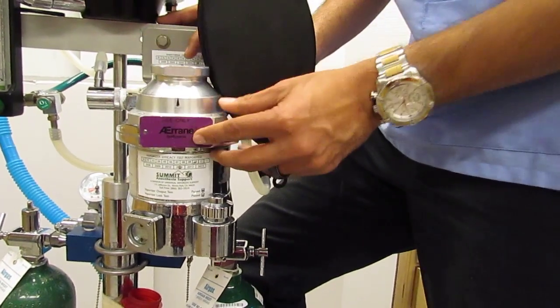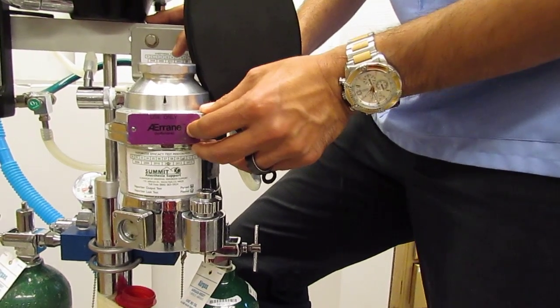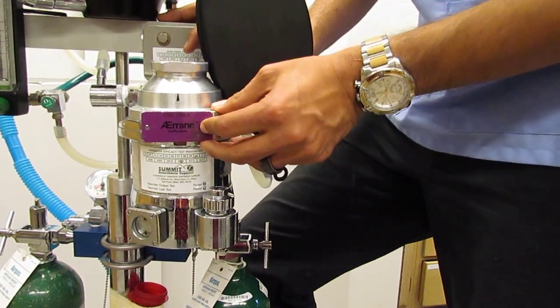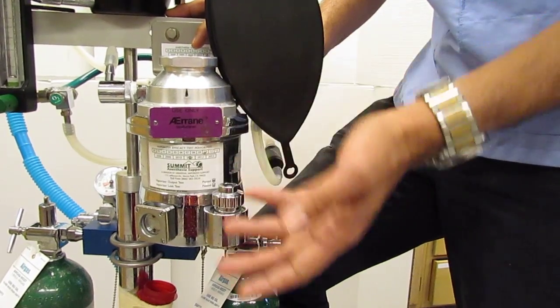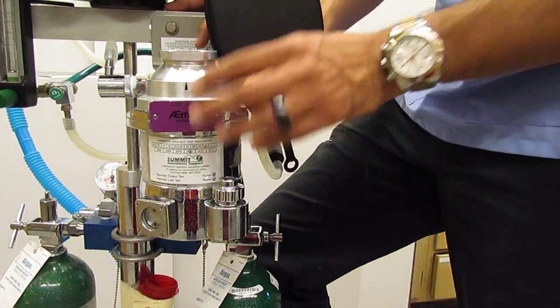the primary function of the vaporizer is to dilute the anesthetic gas to a clinically usable level by converting it from a liquid to a gas and mixing it with oxygen.